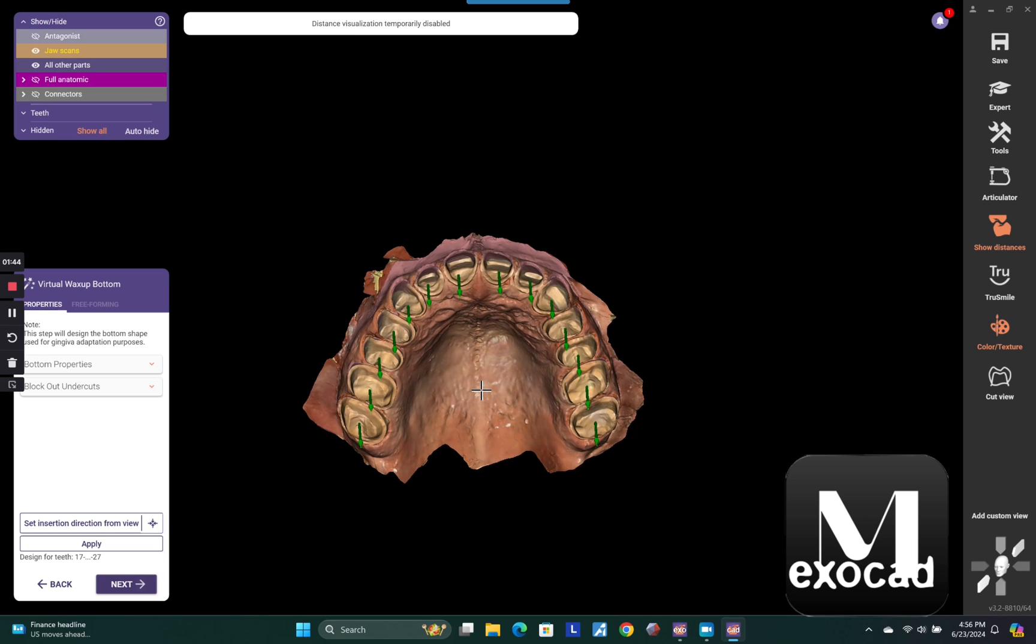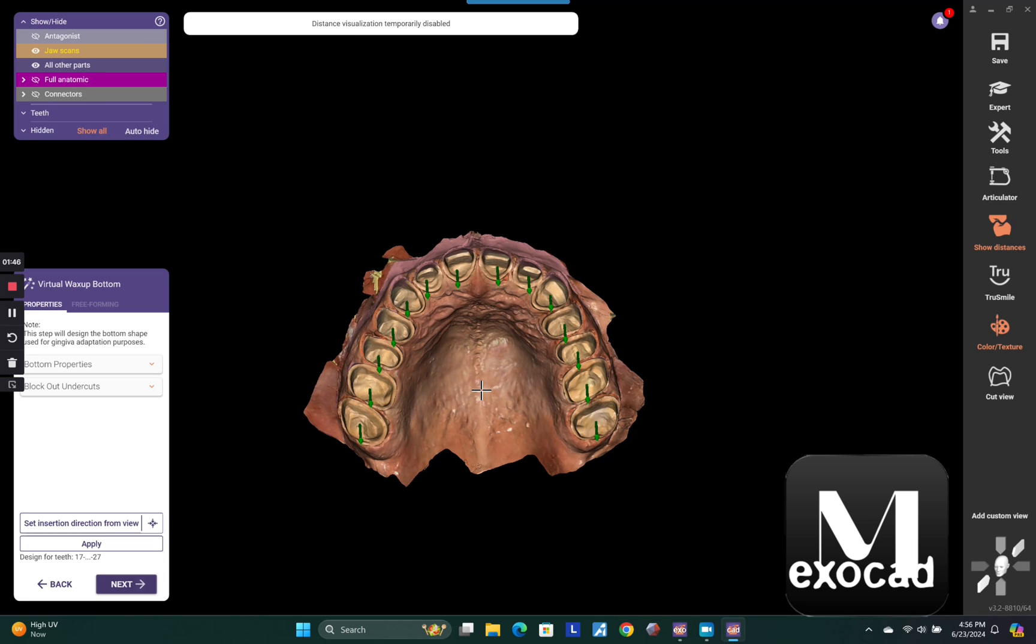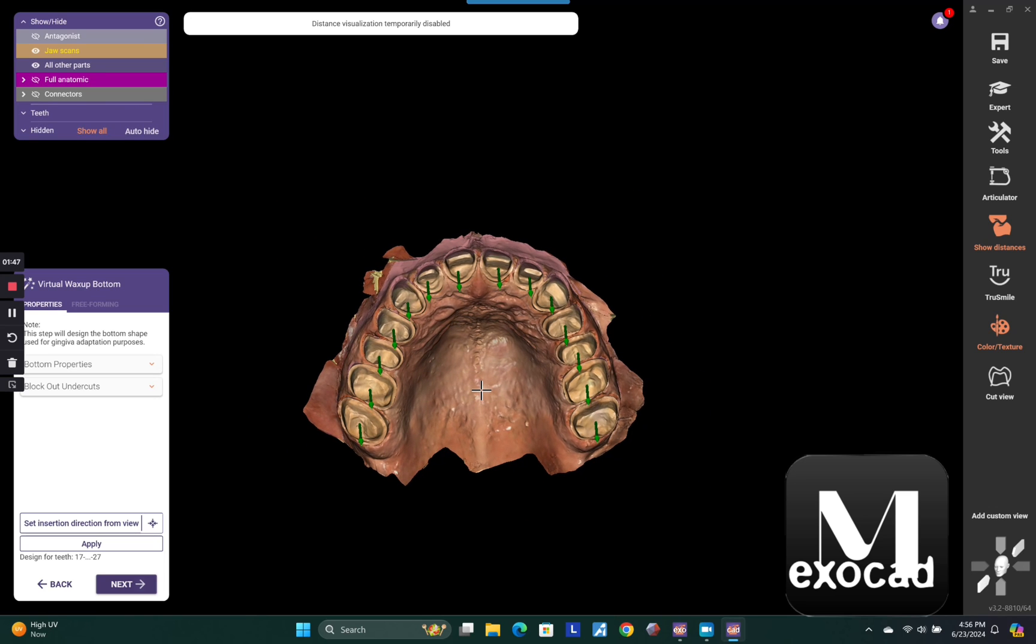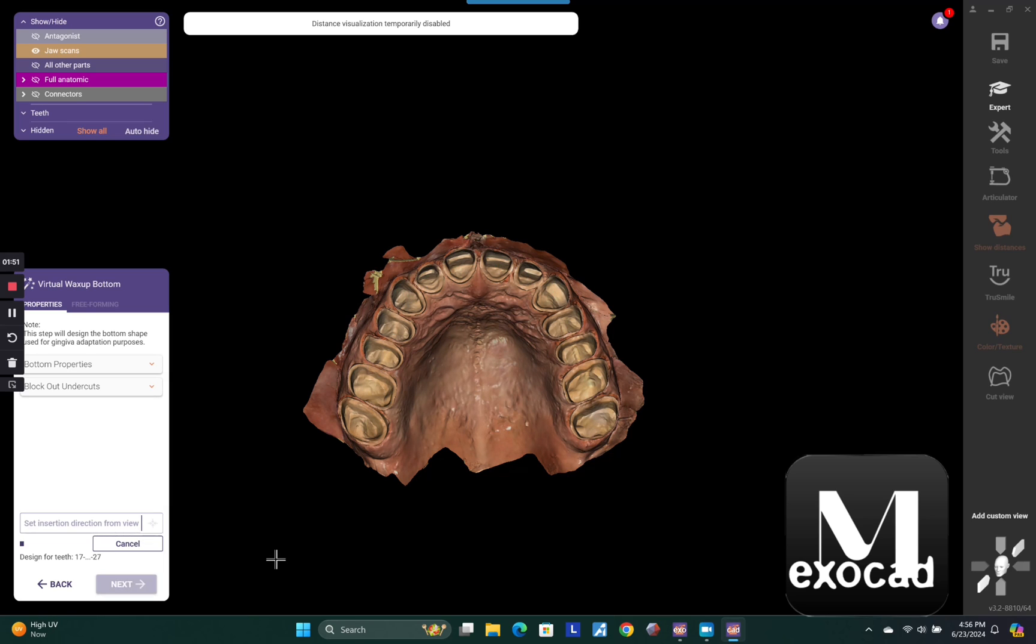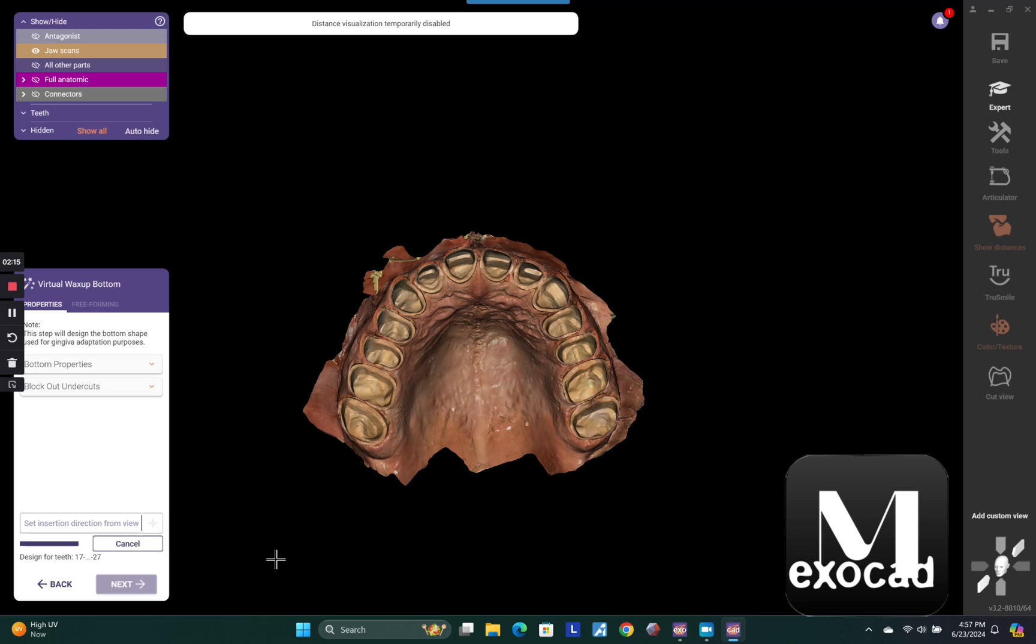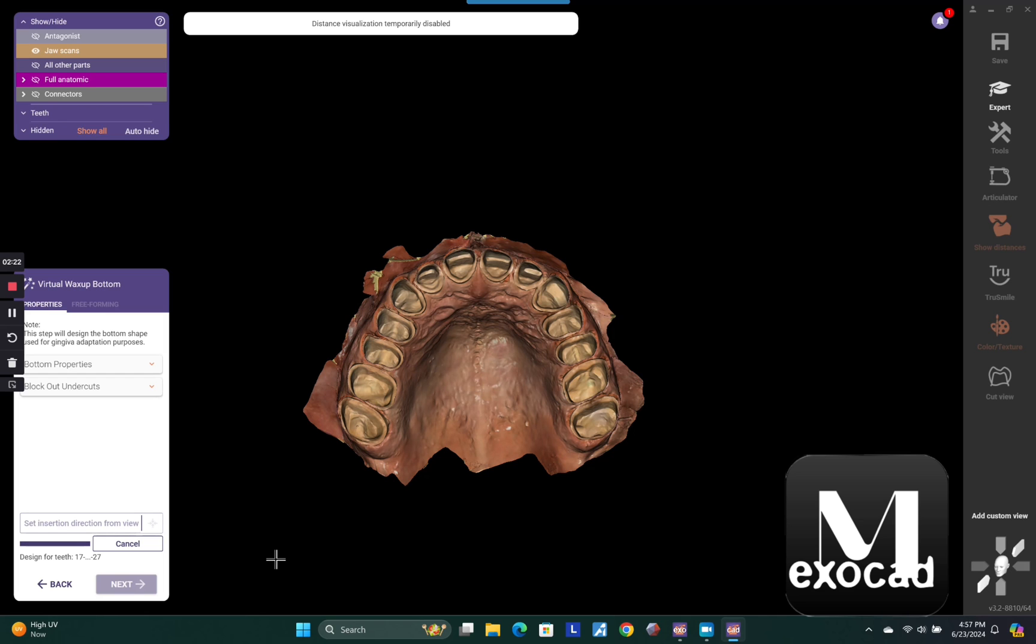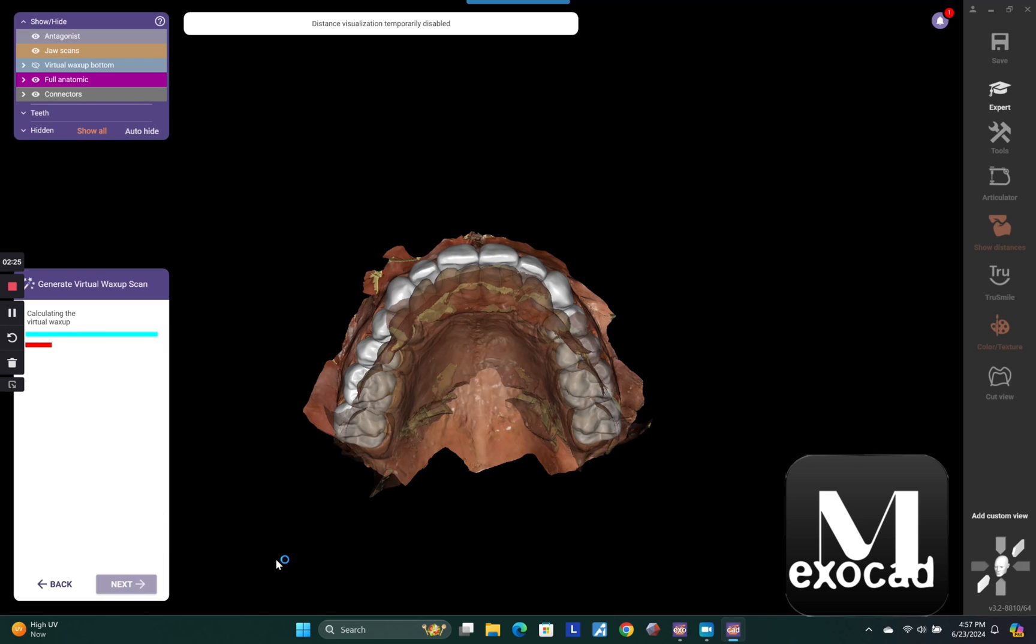So now we're just picking the path of insertion for our full arch of temps. Now, sometimes you might not have a uniform path of insertion for the entire arch, in which case you'll just segment this out and do a quadrant or a sextant at a time here. Just basically what you want to do is see all your margins all the way around each prep. From a unified path of insertion, the software is going to put wax in areas that it thinks might prevent your temp from seating. And so in the case of this full arch of preps, there's going to be a little bit of areas that might have some wax flown in there to ensure that I could seat this printed provisional, which will really decrease stress on delivery to know that it's going to seat.